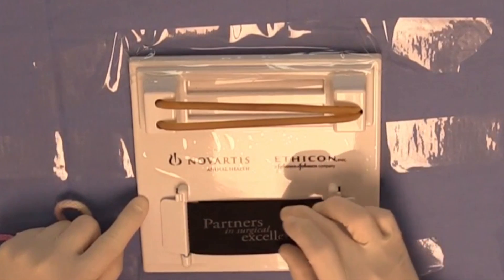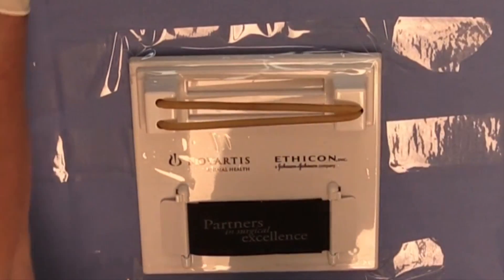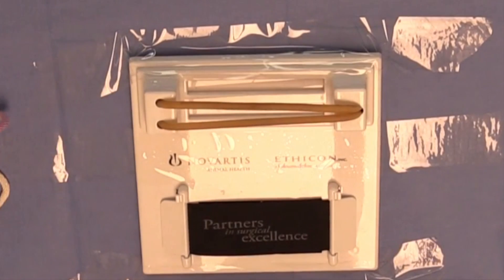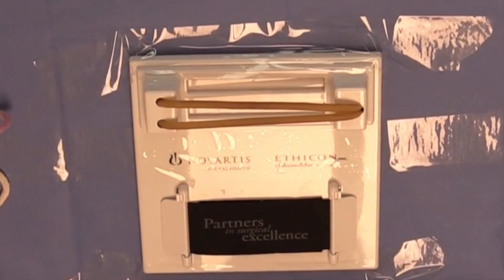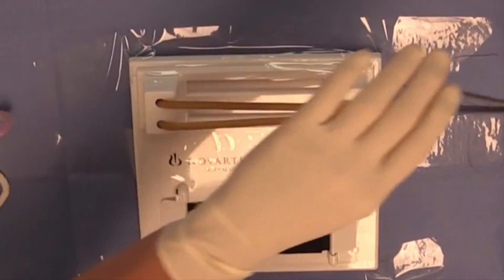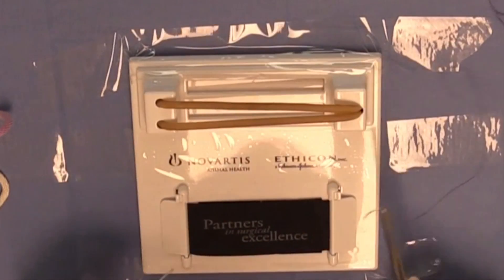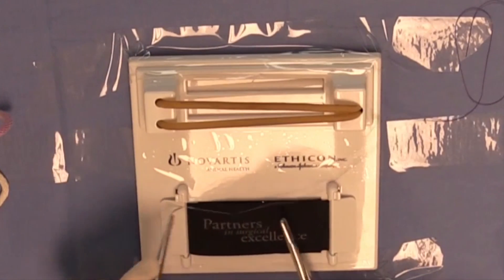On this portion of the Knot Board you could practice suture techniques as well, although for this course you will be given a DAISY — an acronym for the Dog Abdominal Surrogate for Instructional Exercises — so you really will have little use of this portion of the Knot Board, but you can practice suture techniques here as well if you desire.